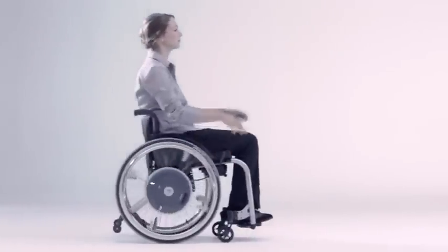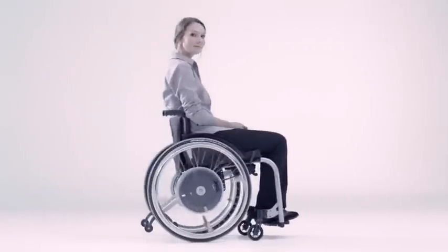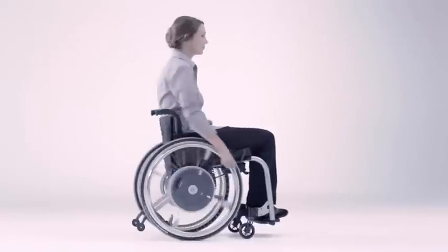The power is increased via the push rim as required. Thanks to progressive drive technology, the motors run without a sound.